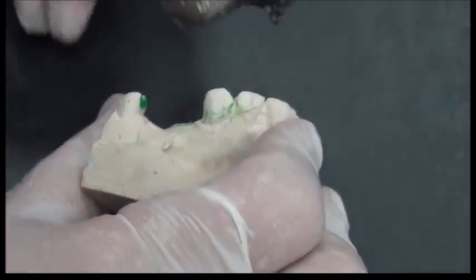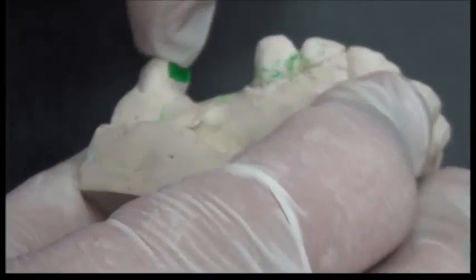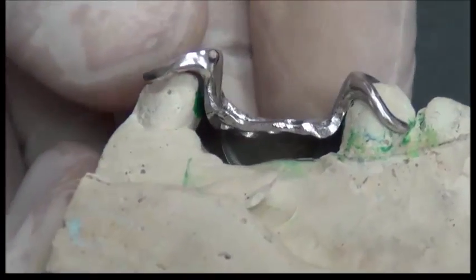This is more obvious when we have two opposing abutments. In this case, going back to this case, we have two opposing components. We have this guide plane, as you see in green, and we have this guide plane. So going in and out would be in a single direction in bounded areas.